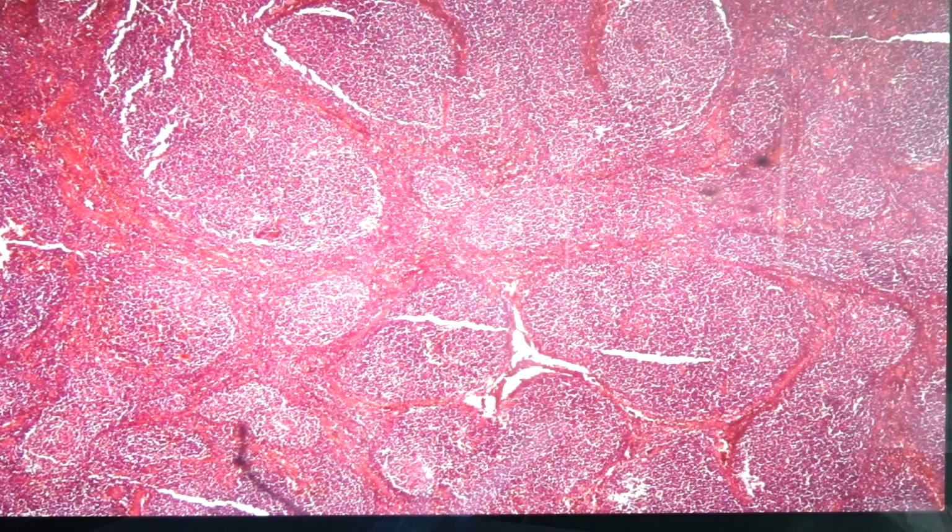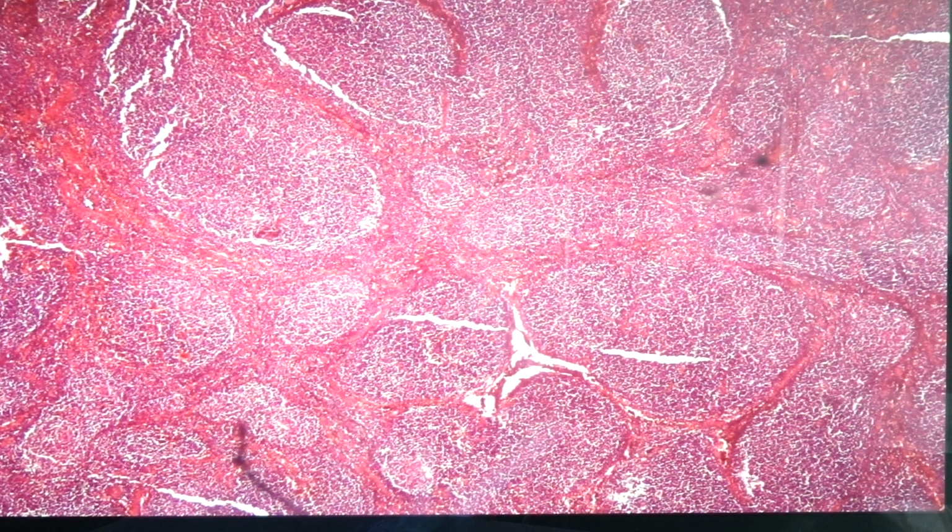We are going to discuss 6 slides for this activity. We have slide 51, that is nodular lymphocytic lymphoma, and this is also called follicular lymphoma. Next we have slide 54, large cell lymphoma, slide 114, gastric lymphoma, slide 191, Hodgkin's lymphoma, that is nodular sclerosing, slide 12, Gaucher's disease, and slide 61, that is chronic passive congestion of the spleen.